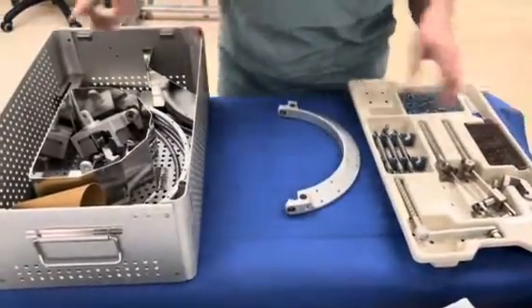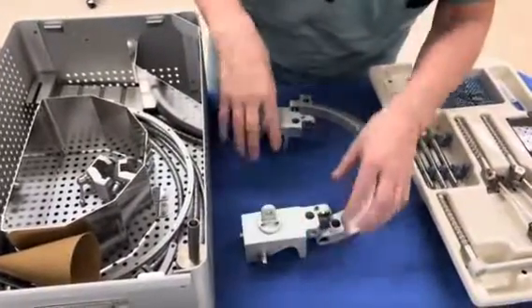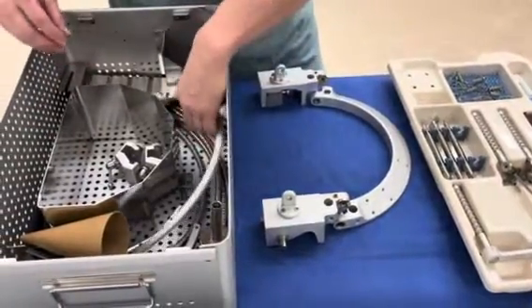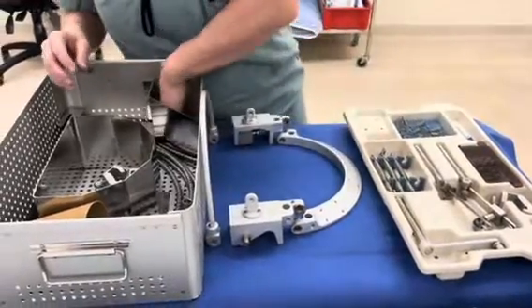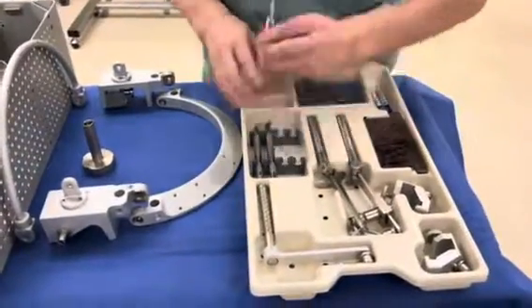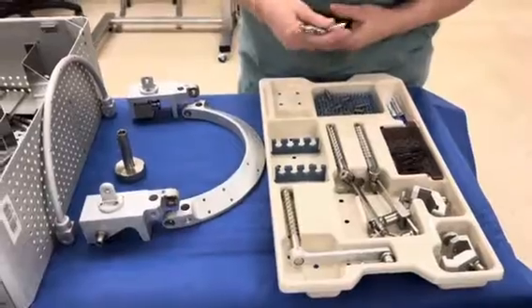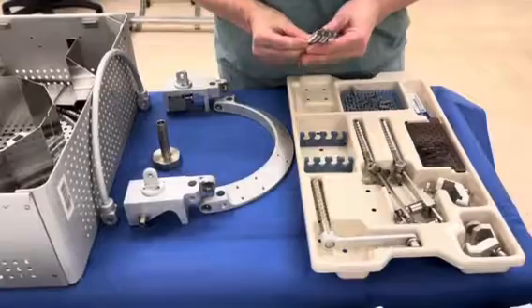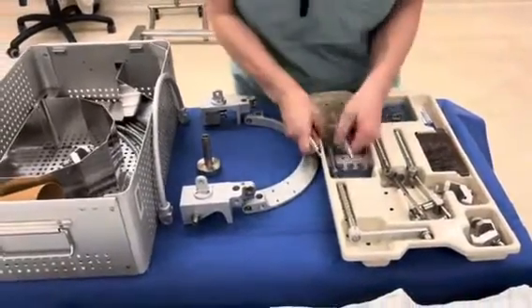You're going to need this, and in here there are these two blocks. You may or may not need this one, but I'm going to go over putting it together. You also need this wrench. From this box here, you're going to take these pins — take three of them and put them on your shave prep tray. They don't need to be sterile. Instead of pinning the patient, we're putting this into the frame.